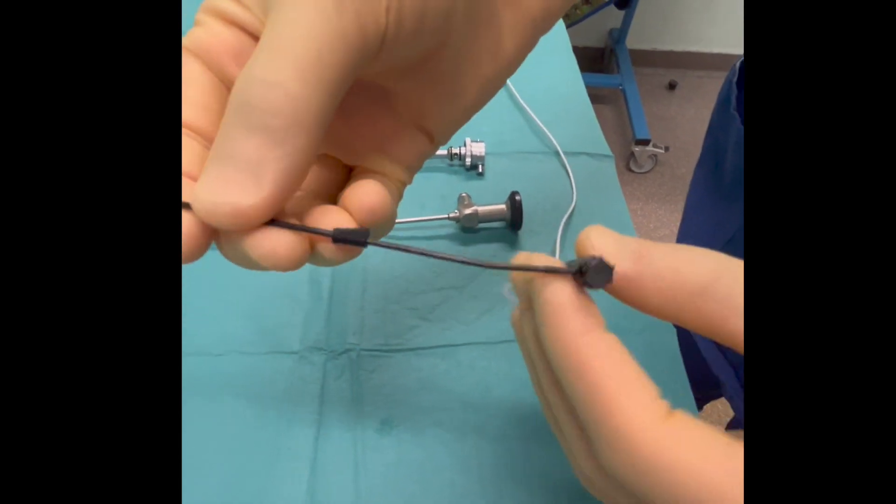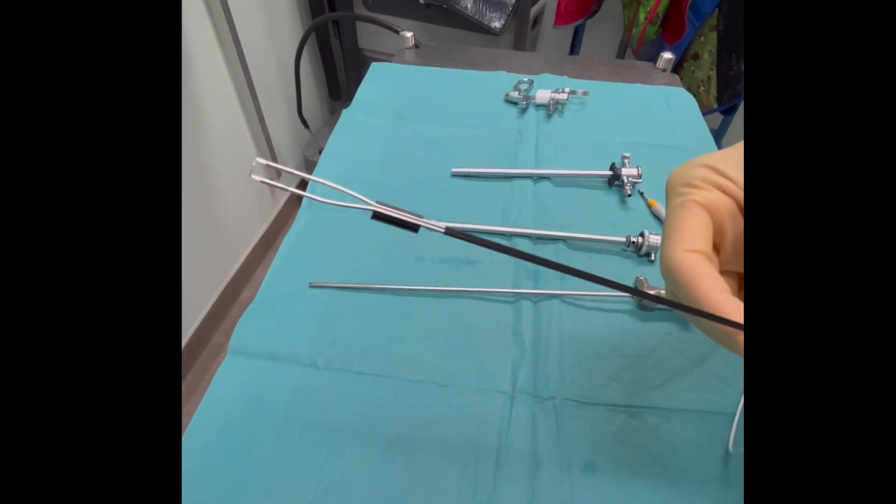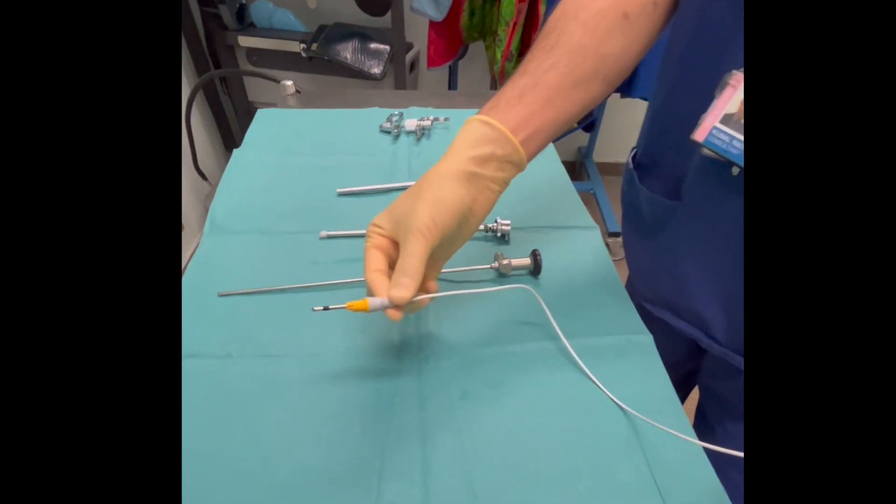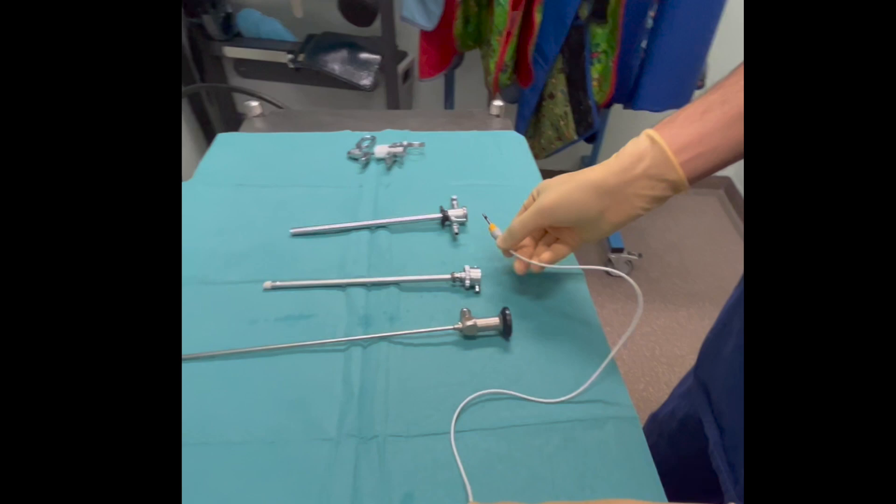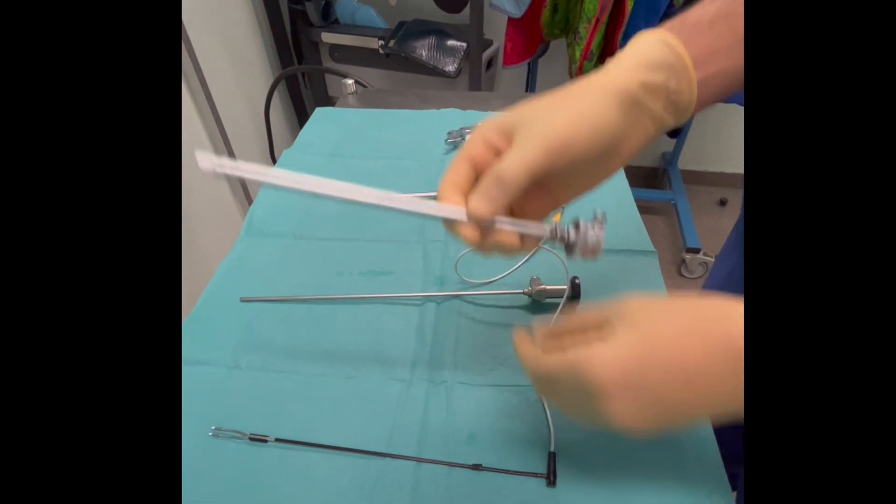This is the electrode, the mechanism of which is a passive electrode. It is attached to a connector which is color coded. Once it is fixed to the generator, the current settings are automatically reset with a cutting current of 140 and coagulation of 70.